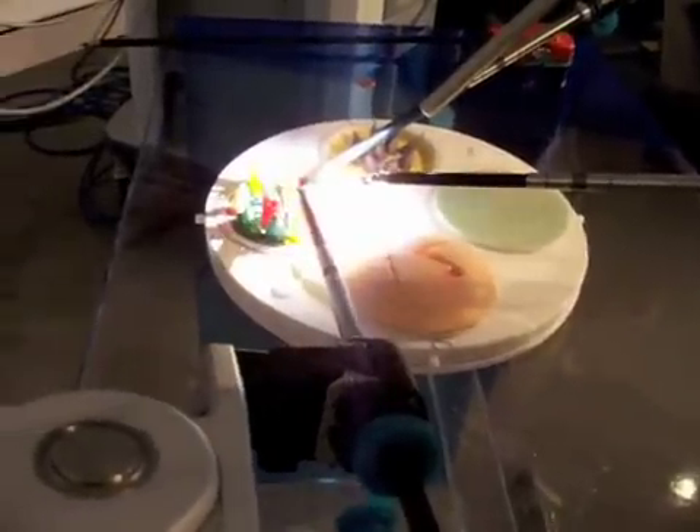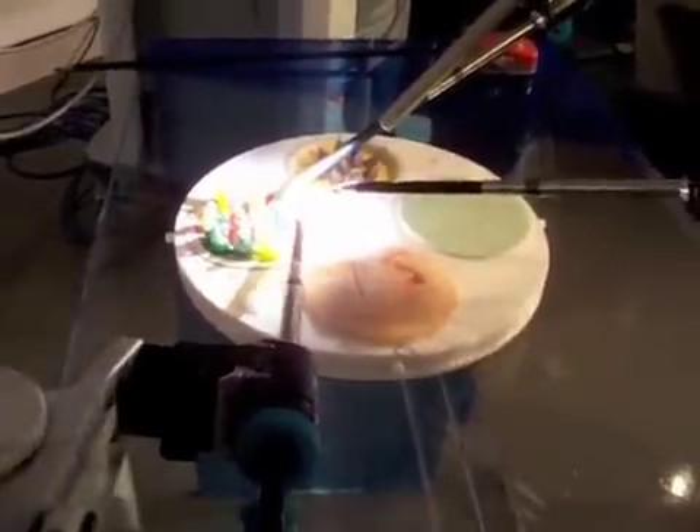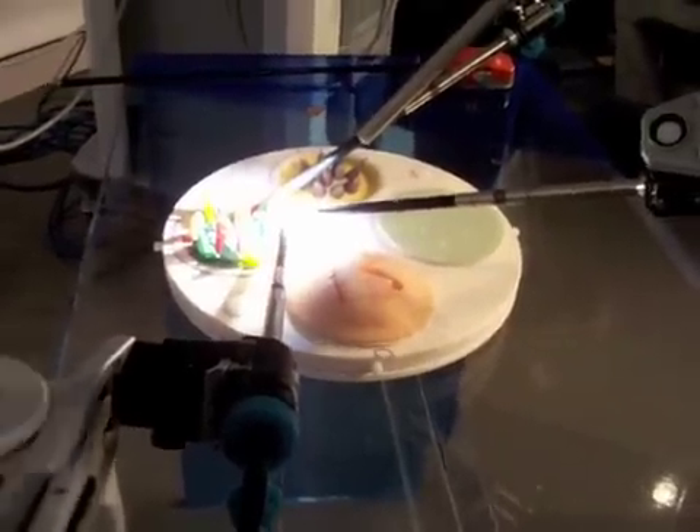These arms are normally all draped out, and the drapes are clean, disposable, single-use types. They drape all over all of that, so after every surgery they take the drapes off and put new ones on.